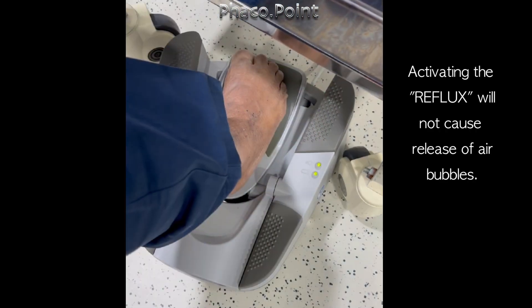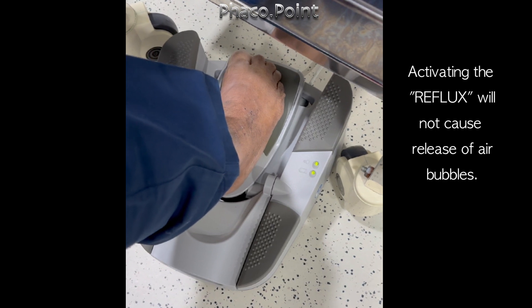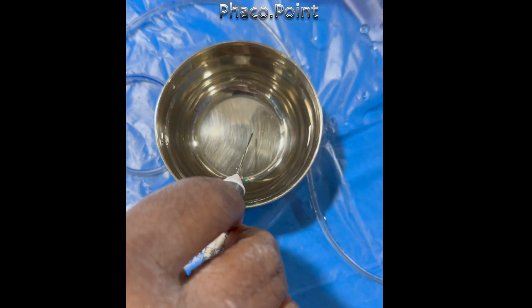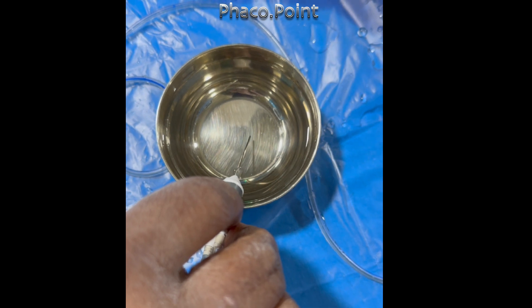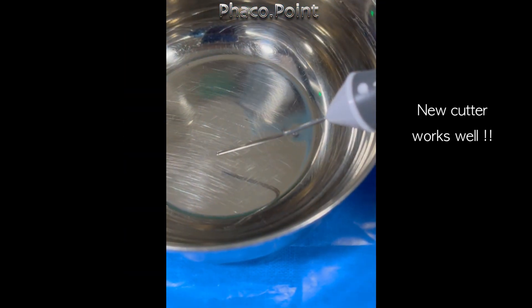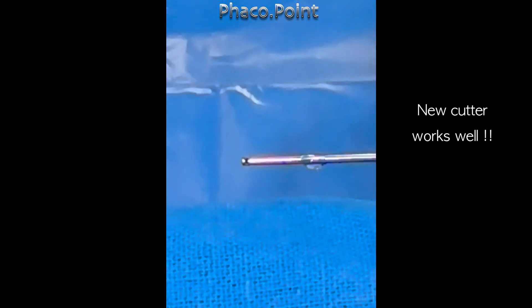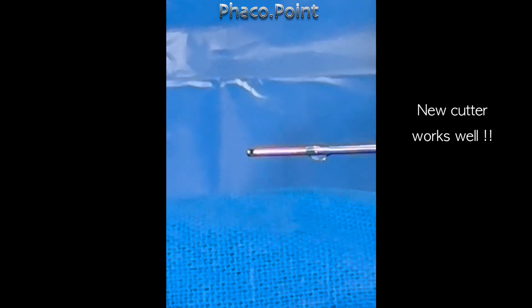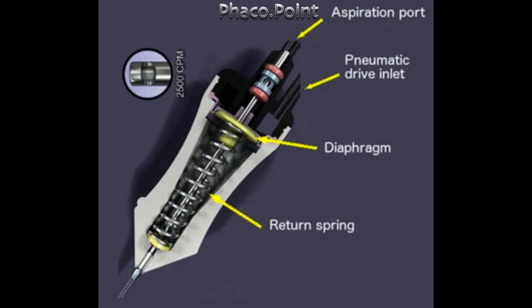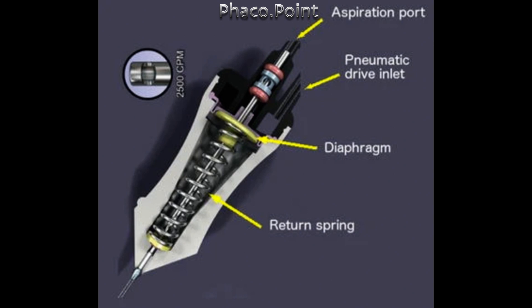Also, we find that the reflux button when pressed will not lead to the release of air bubbles as happened in this case. Now let's take a normal cutter — this is the way it functions: when you activate the cutter the inner tube moves. So the problem in this particular case was not with the tubings or the attachment; the problem was in the vitrector handpiece itself.